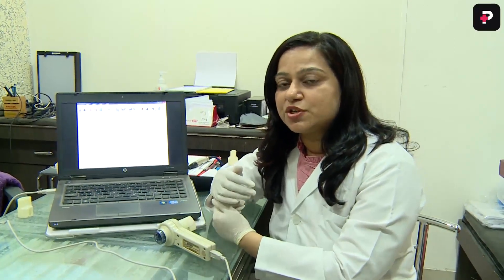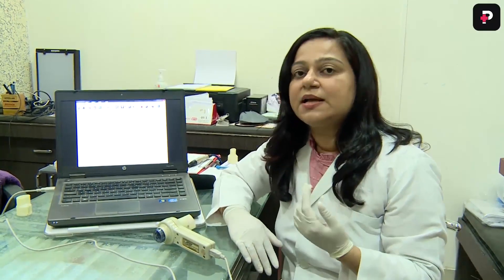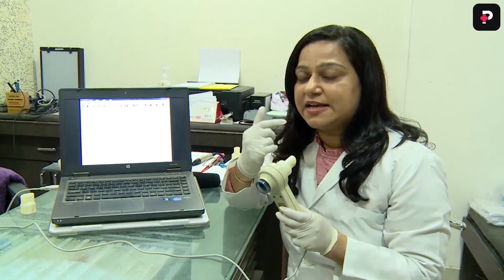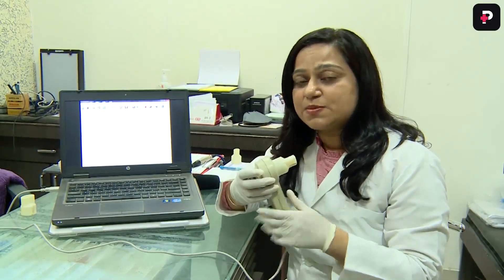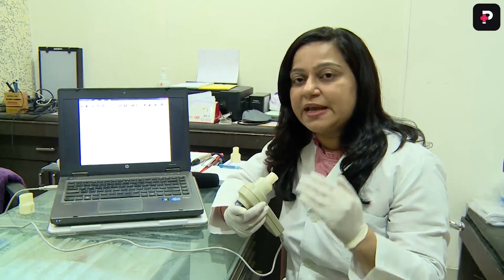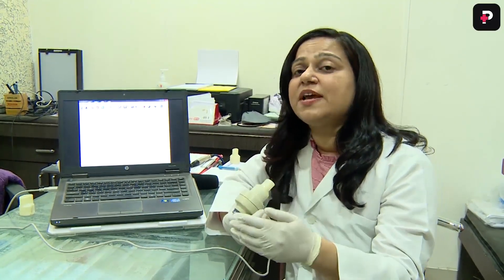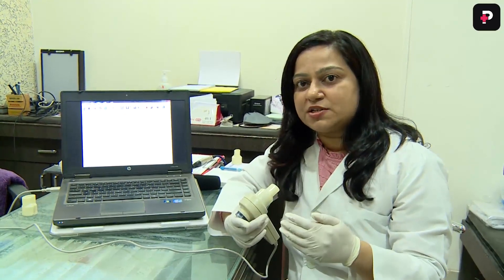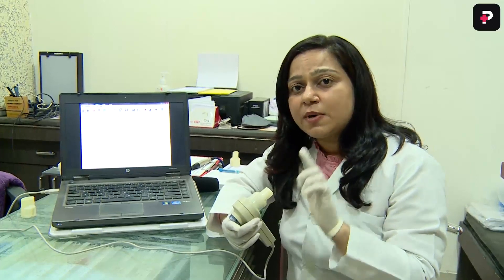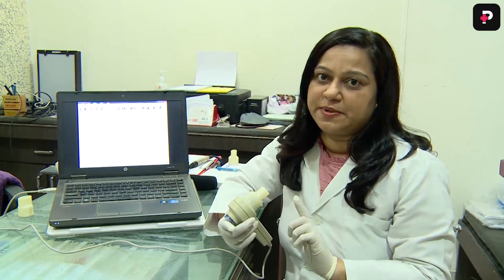For forced vital capacity, you need to ask the patient to inspire deeply as much as possible, then clip the nose, hold the mouthpiece tightly, and expire into the mouthpiece as deep as possible, then sustain that expiration. Once the expiration phase is over, ask the patient to inspire from that mouthpiece only, as deep and as long as possible.